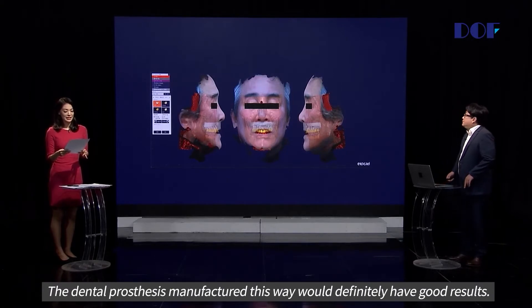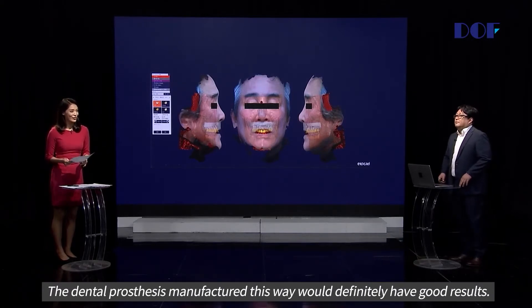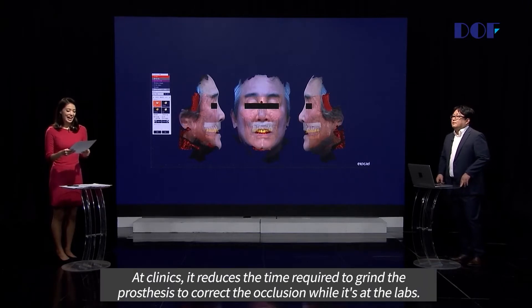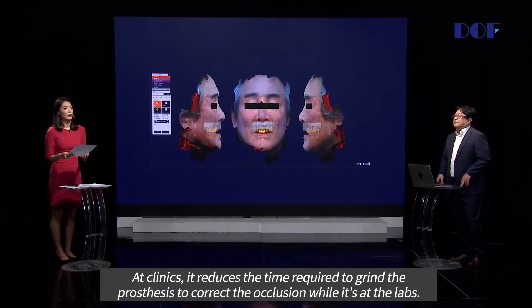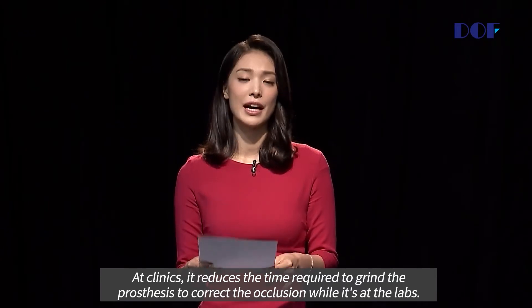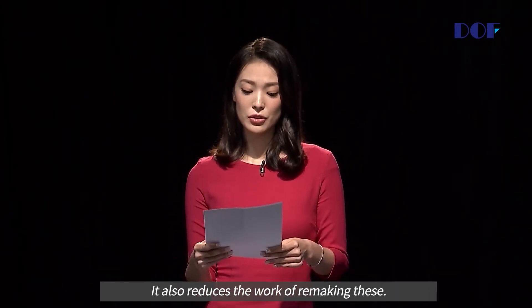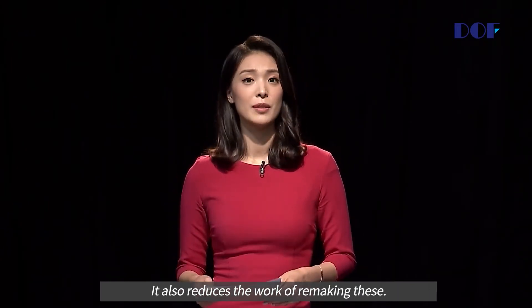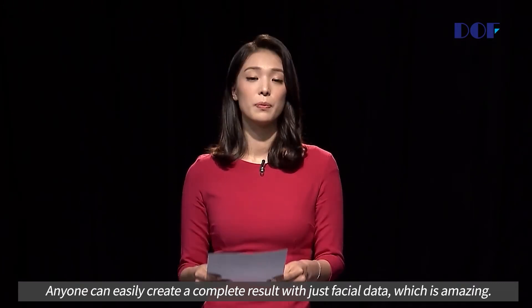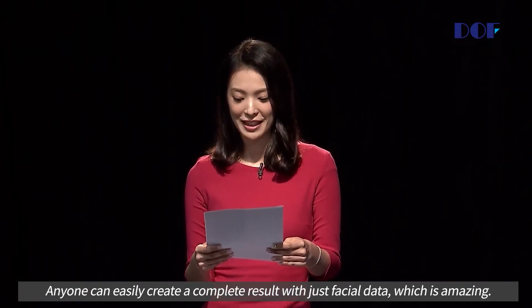The dental prosthesis manufactured this way would definitely have good results. At clinics, it reduces the time required to grind the prosthesis to correct the occlusion, and it also reduces the work of remaking these. Anyone can easily create a complete result with just facial data, which is amazing.